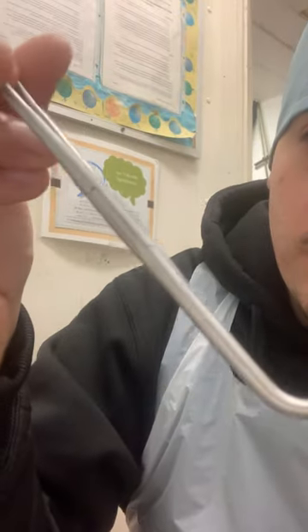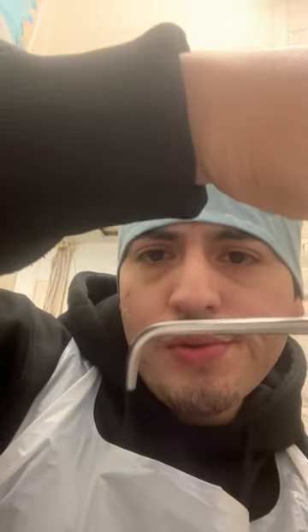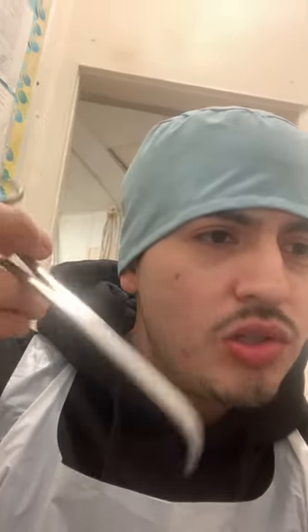I want to share another one right here. These are a right angle, size 7.75. As you guys can see, it's a scissor-shaped tool with a little angle at the tip. It's stainless steel. Being that it's kind of pointed at the end, I think it might be used to grab something at an angle maybe. I think this one might be used somewhere in the stomach area where you have to go deep into the patient to get whatever you need to pluck with this.